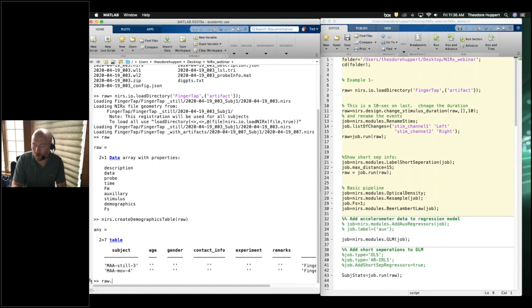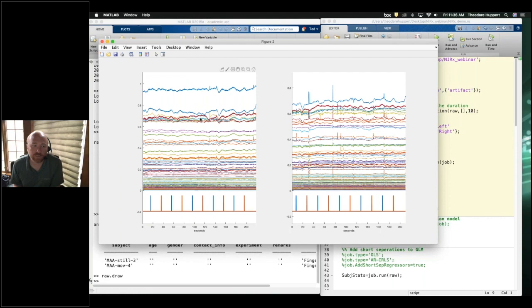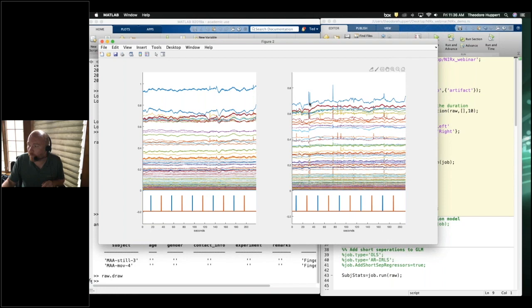If we say raw.draw it's going to draw both files. The first one shows finger tapping while seated. The second one has a little bit of motion artifacts — some files have a slight shift, a couple of spikes in the data. These are clear outliers, an order of magnitude difference in terms of the jump at that time point versus the rest of the data.